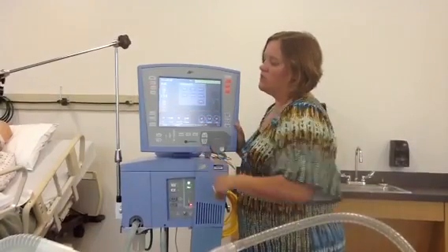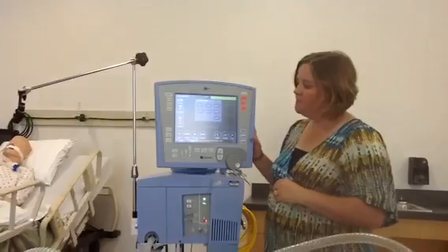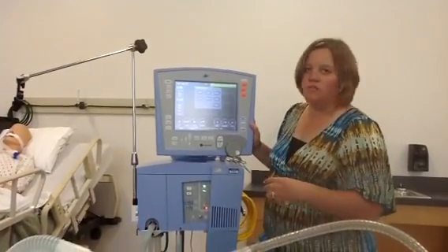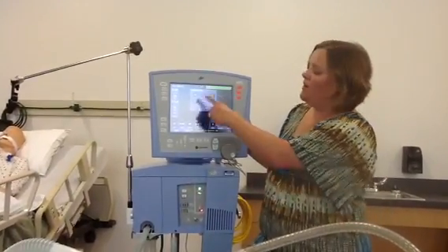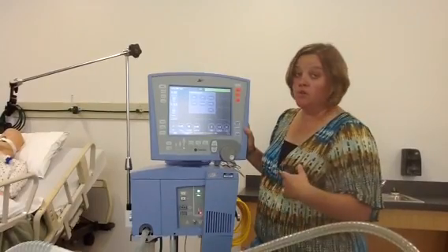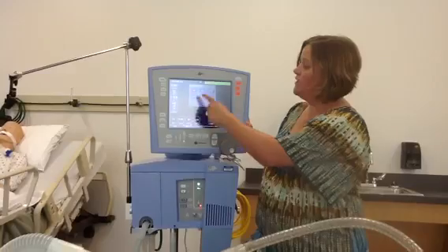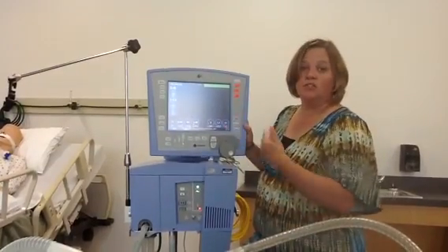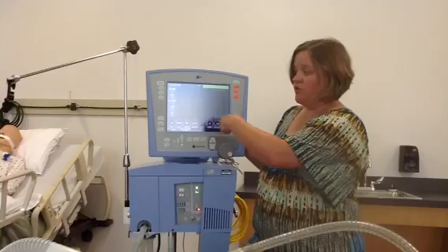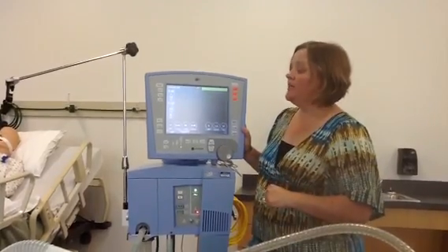This next button is called the screens button, and there are lots of different things you can do with it. Today's video isn't really about everything it does, but if you wanted to change over to your loops — you have your three scalar graphics here — you'd go to loops, and your screen changes so you can see all of your loops for your patient.